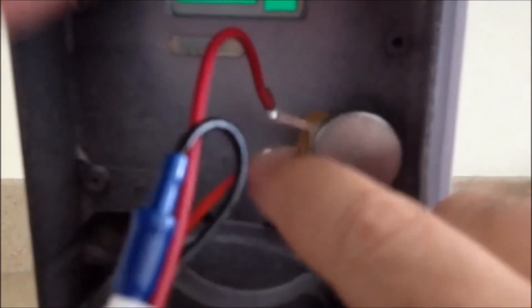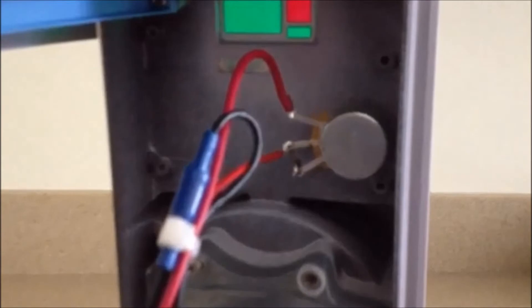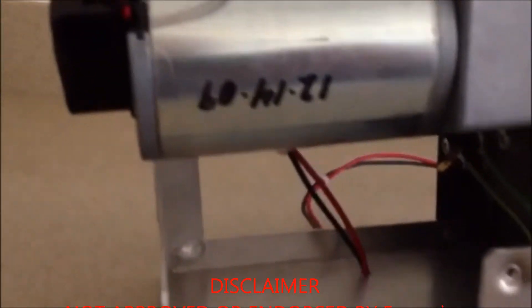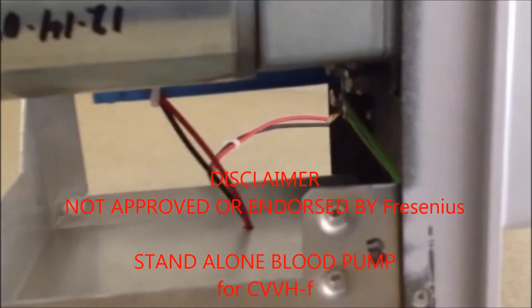These are the connections where you can connect the resistor. There used to be a ribbon right here that can be cut. There is no need for it. This is the motor that has been connected and it's down to bare minimum.